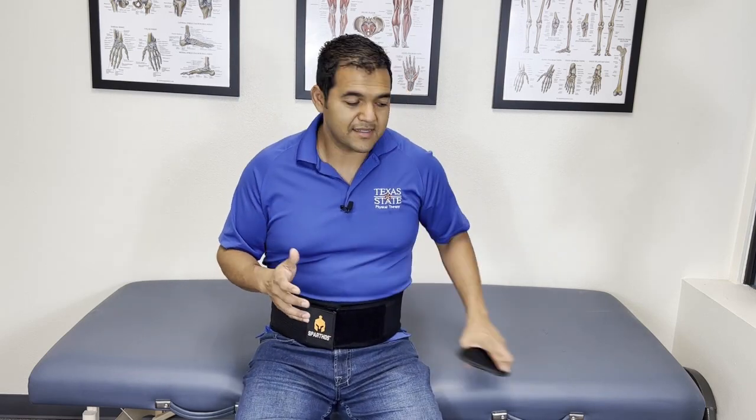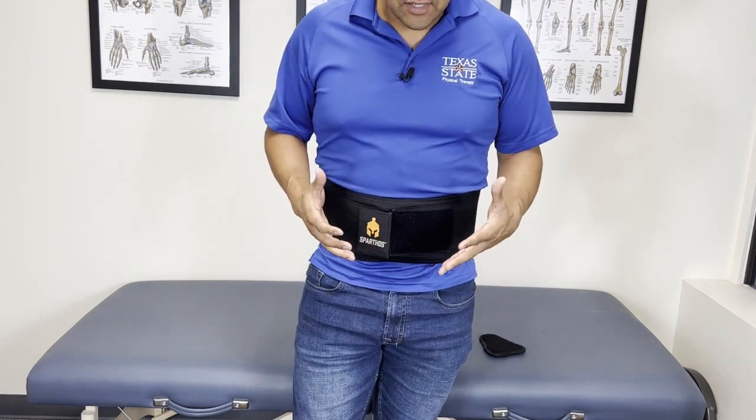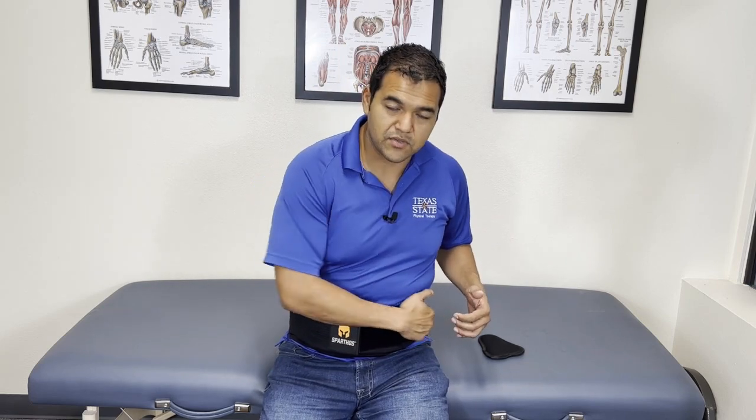The main con is you've got to pick the right size. With this one, I feel like I might be able to go a little snugger — I'm right on the edge of large and I'm wondering if I should go with a medium. I'd see how your back feels and give it a shot. The nice thing with Amazon is you can return things as long as they don't look too worn. You can take them to a Kohl's or Whole Foods and they'll return it for you — you start the return process online.